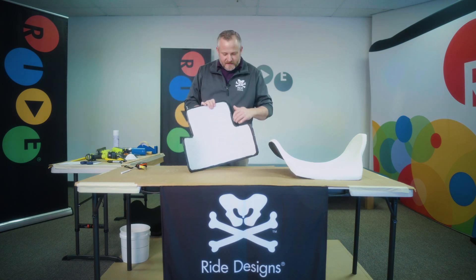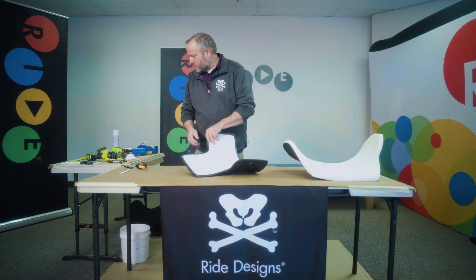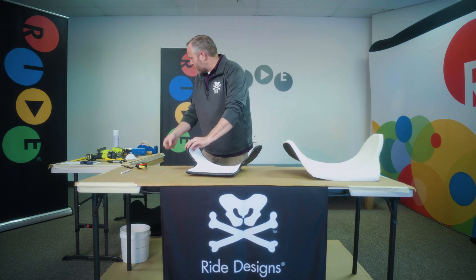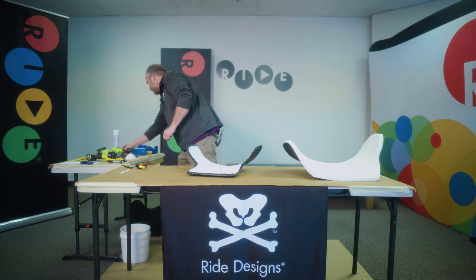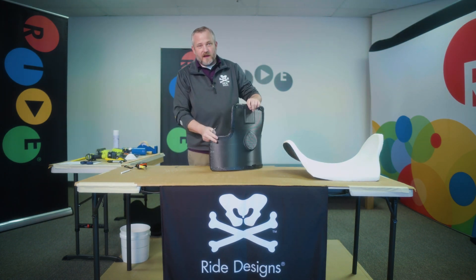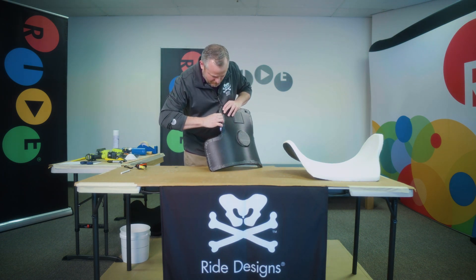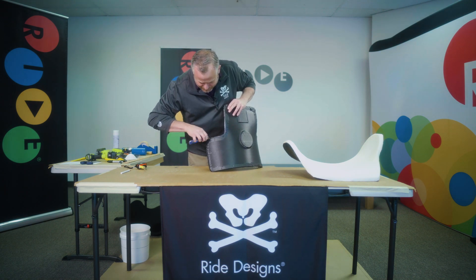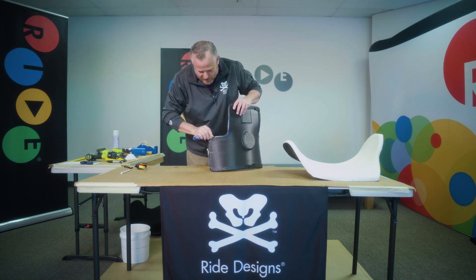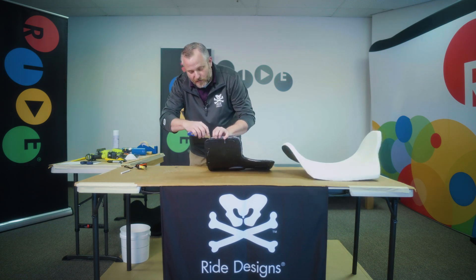Now what I want to do is peel away this foam, this mesh material — or in the Accusoft foam, we peel that back too. I'm going to start here with a razor or razor knife and trim away this tape from the lateral, all around the edges. This is just black masking tape that we're using now, so when we go back and finish the edges again, we're going to use a standard white or the normal masking color tape.